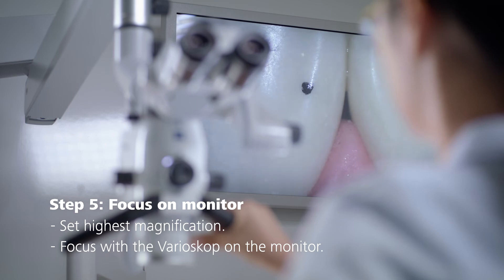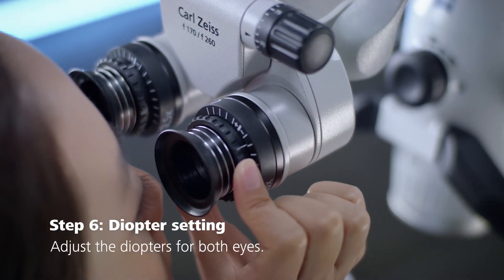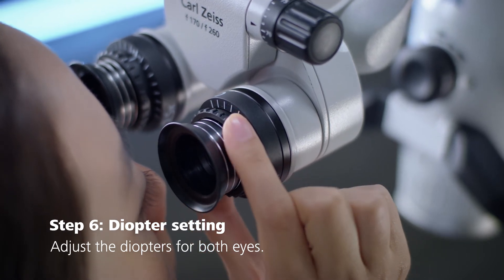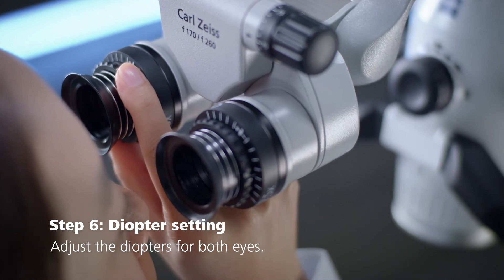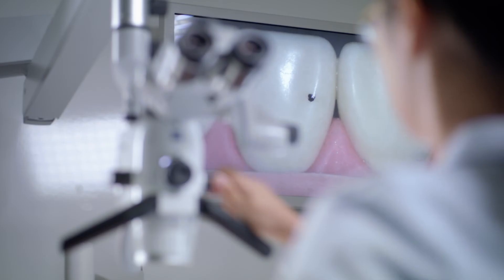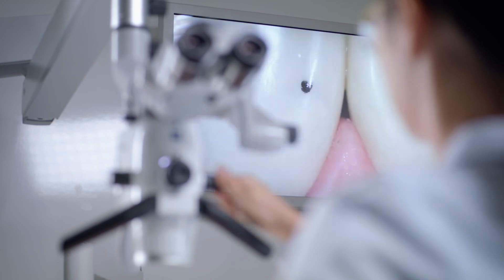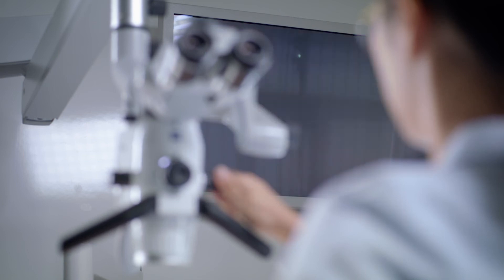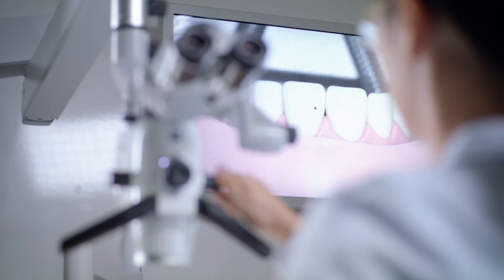Afterwards, adjust the diopters for your dominant and non-dominant eye by turning the individual diopter rings clockwise until the image of the object in the eyepieces is in focus. By following these steps, you will achieve the same focal plane on the video monitor and in both eyepieces at the same time and at all magnification factors without refocusing.